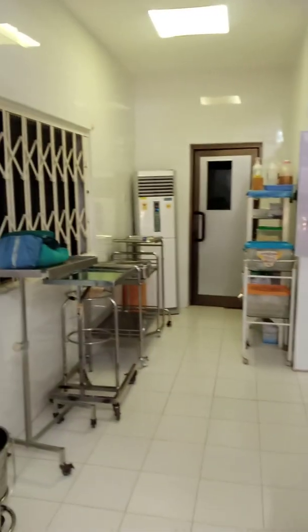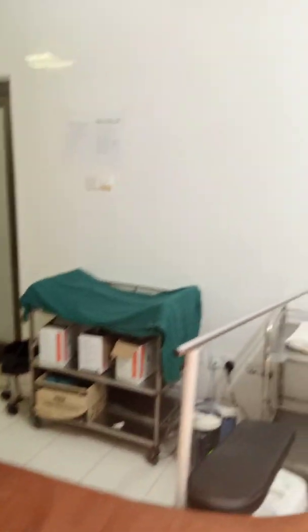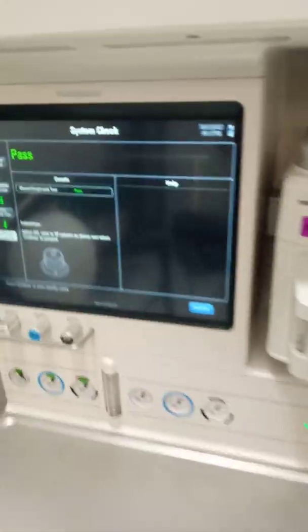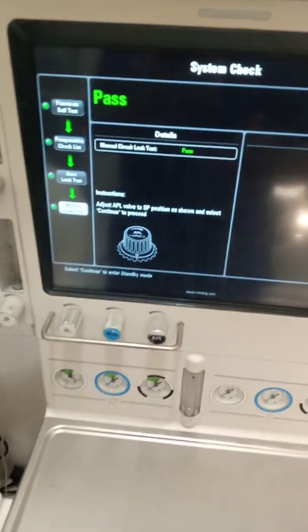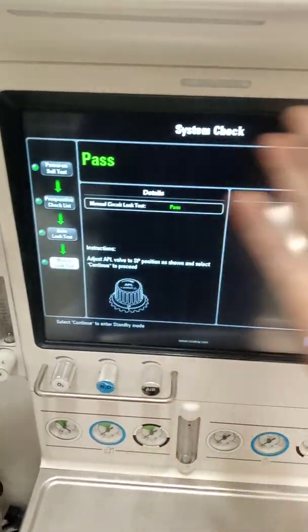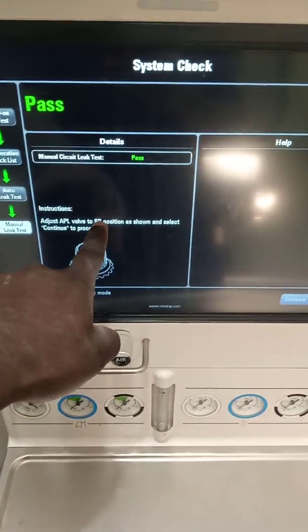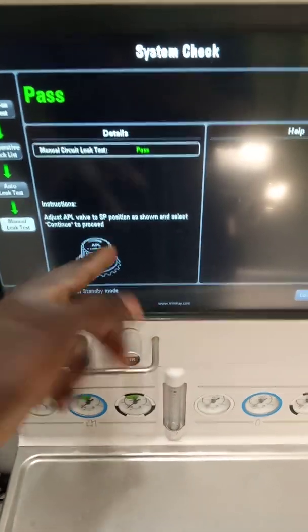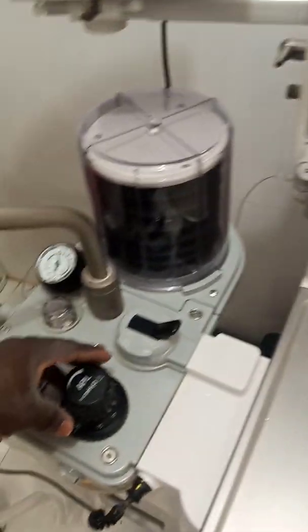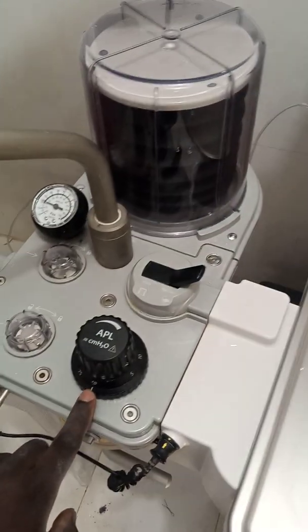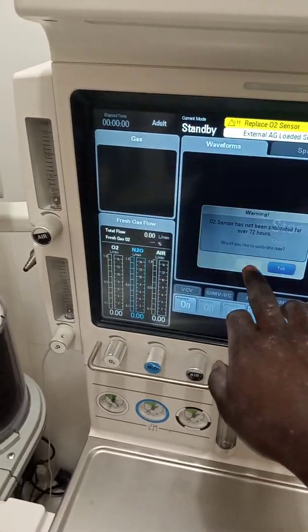Every theater is supposed to have an anesthesia machine — it is a requirement for every surgical theater. Manual circuit leak test: pass. Adjust the APL valve to the spontaneous position as shown and select continue to proceed. We are done with our calibration — we are adjusting it back to the SP, that is spontaneous position, and then we press continue. We are done.